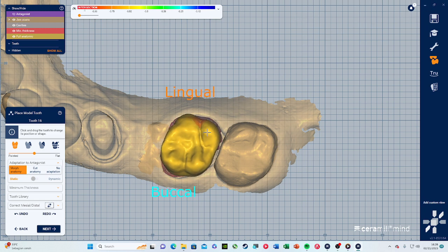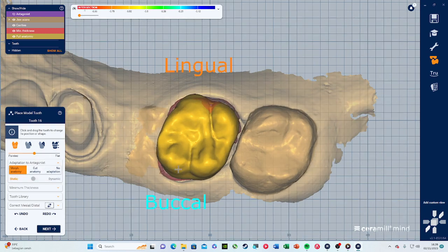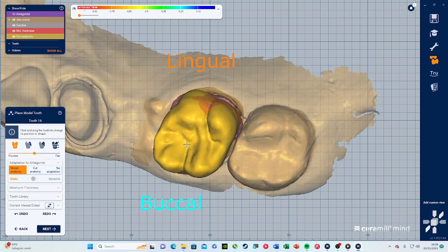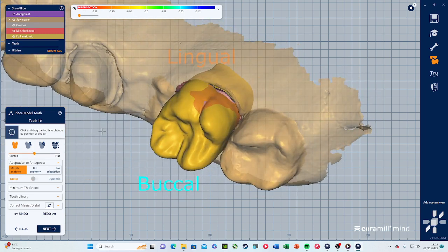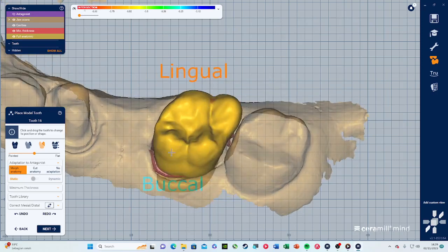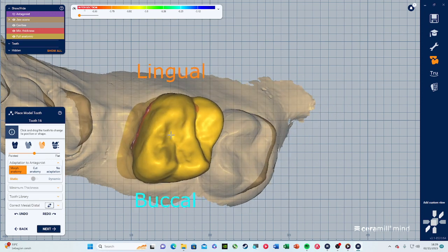Now I want to use Free Form here — tooth transformation scale directional. I would scale the whole tooth by pressing Shift, or you can scale just part of the tooth. Let's scale this part first and then form it — scale it outwards. Then this part we can scale a bit here also, and this part also has to be scaled.